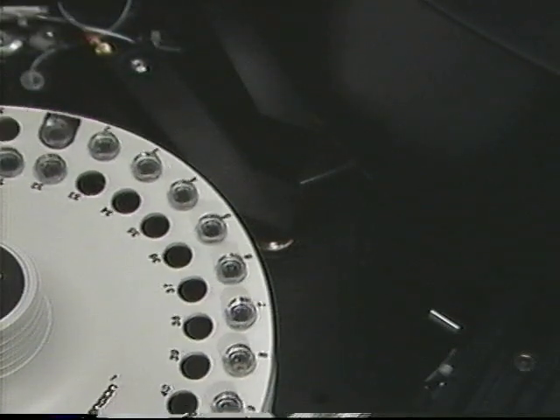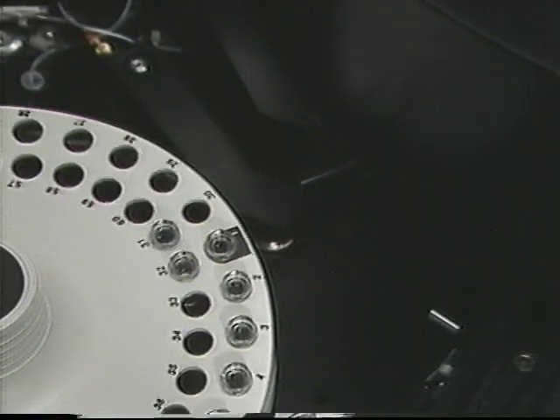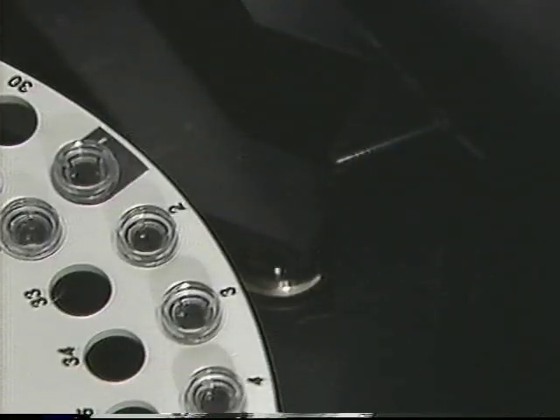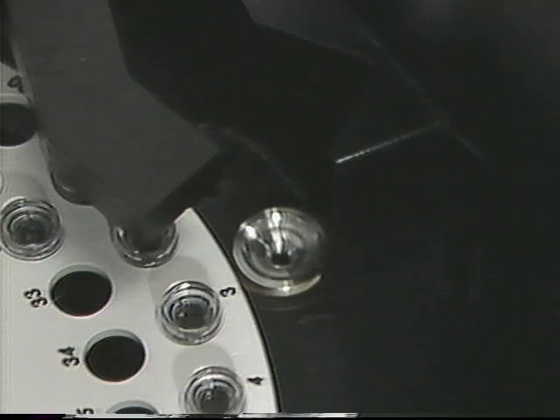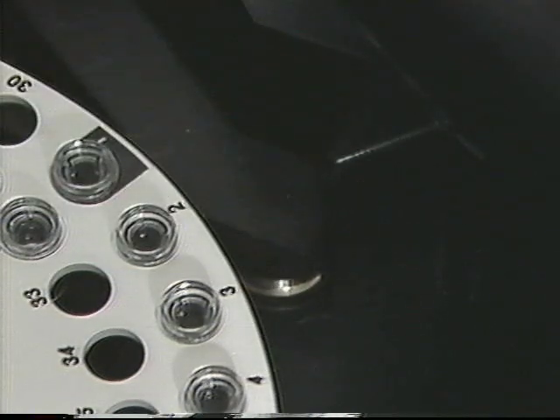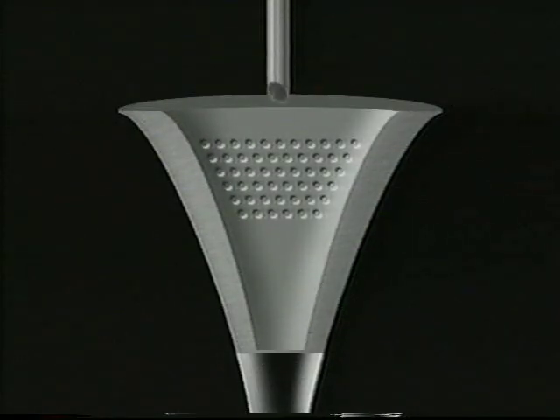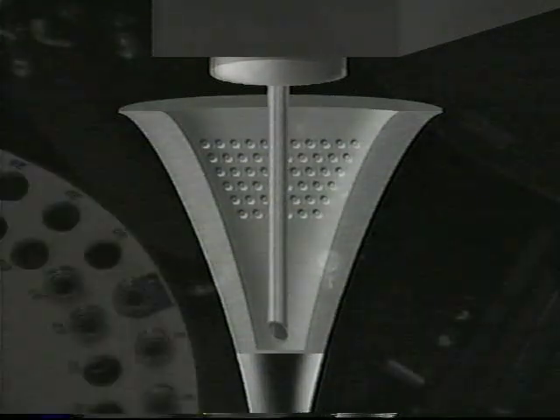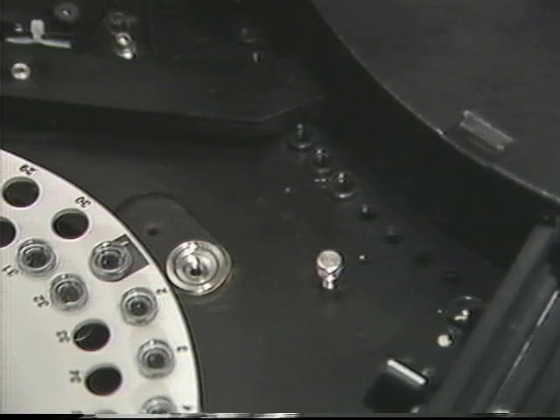Sample cups can be loaded onto a sample wheel at a workstation or on the instrument. When the sample wheel is loaded and the test process begins, the wheel moves the desired cup into sampling position. The sample arm pivots to draw a precise volume of sample, stopping at the sample drain where the outside of the sample probe is vacuumed to provide accurate sample delivery.